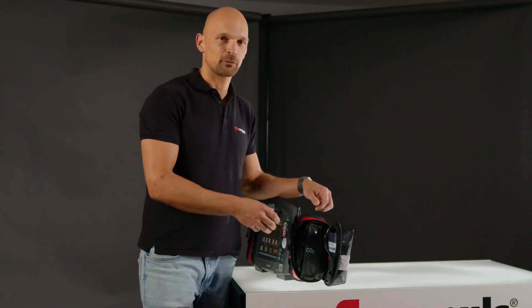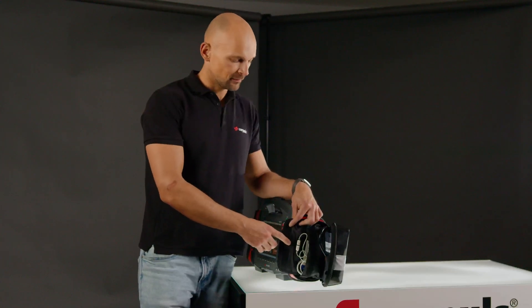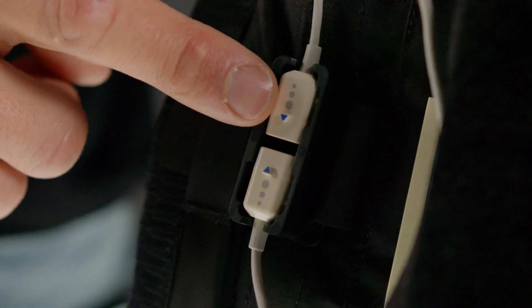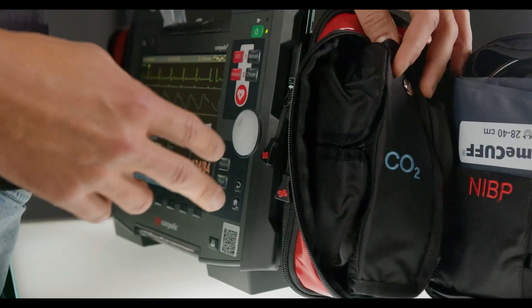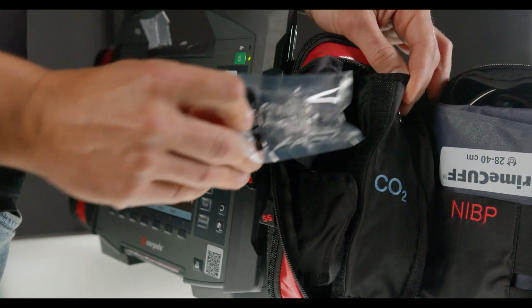I would like to show you a few special features of the CO2 cable. We need to make sure that as soon as the sensor is not being used on the patient, the two sensors must face each other in the holder provided. This will prevent false alarms. The cuvettes are stored in the pockets below the cable and can easily be removed from here.